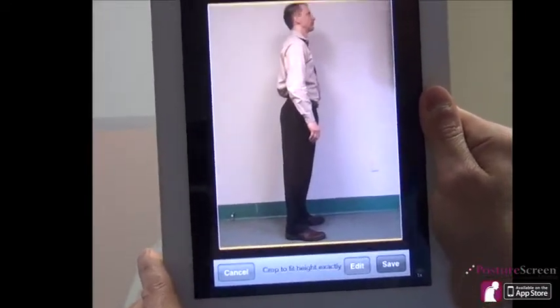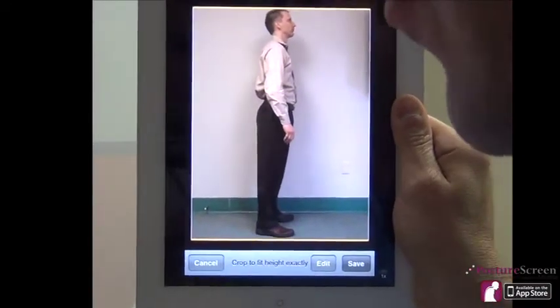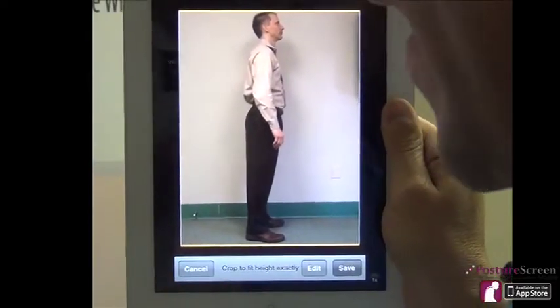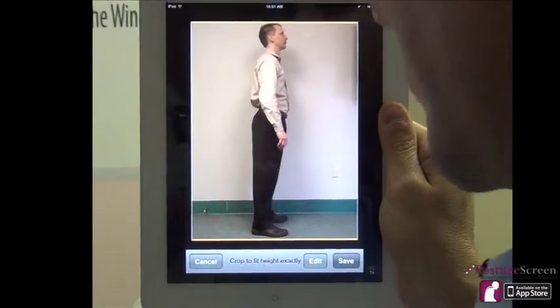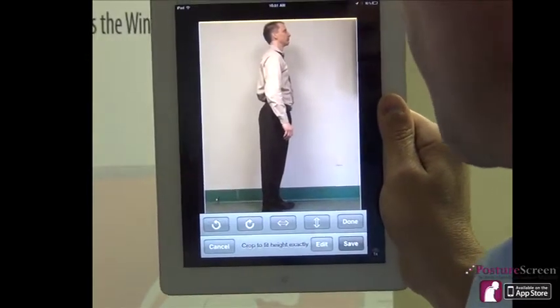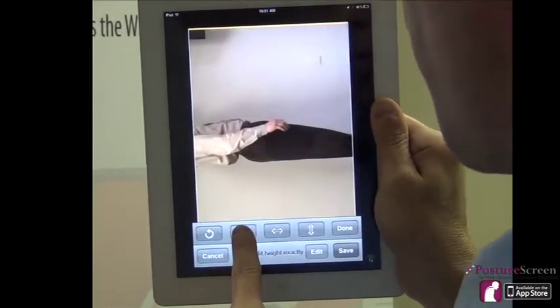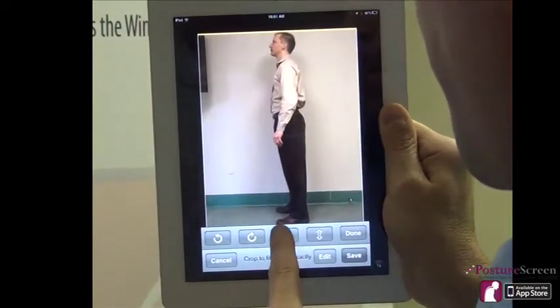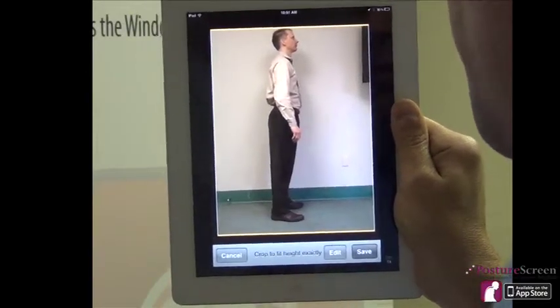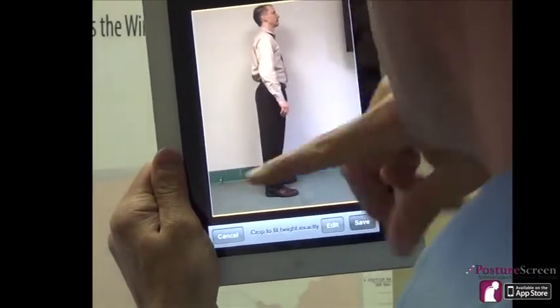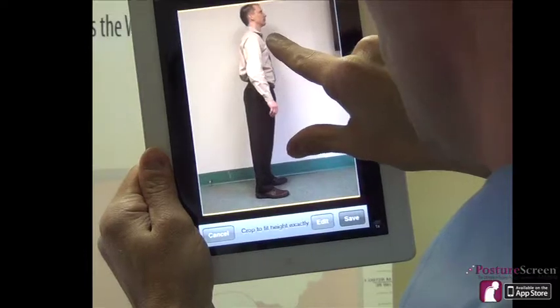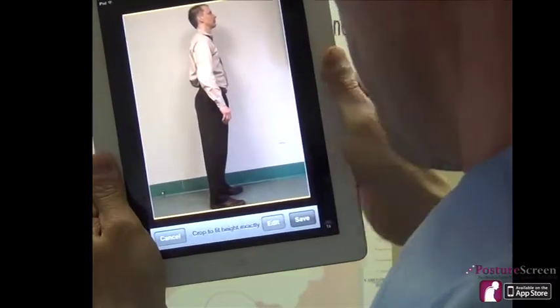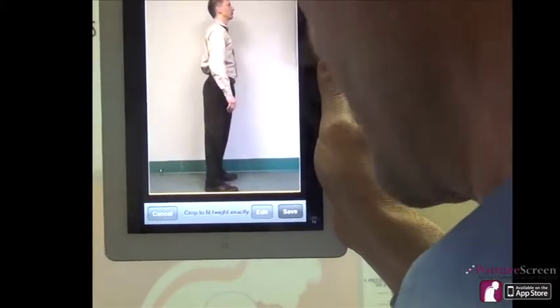There are going to be some new edits. If for some reason you took a picture and the patient was facing the wrong way, or you took a picture on a camera and need to flip the image, we now have editing tools. We can turn the person or flip the person — that's a common mistake people make. But the most important thing, and this is the number one mistake people make, is to make sure the head and the feet are at the bottom and top of that yellow line. Otherwise, you won't have a calibrated image.